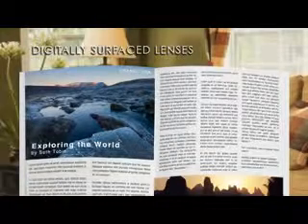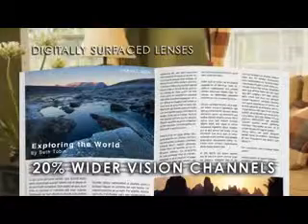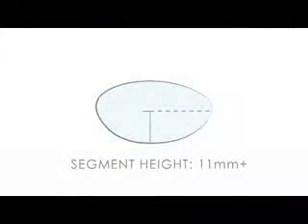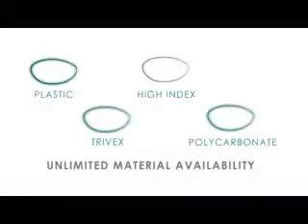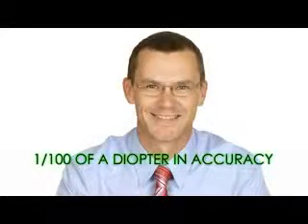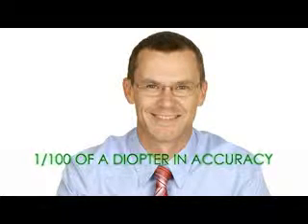In addition to up to 20% wider vision channels, these customized lenses have a segment height of 11 millimeters and up, have unlimited material availability, are up to 1-100th of a diopter in accuracy in the prescription and design, and can be sport and hobby specific.